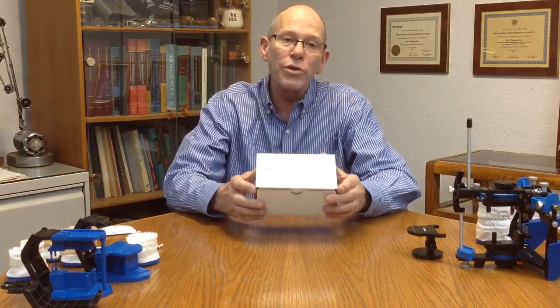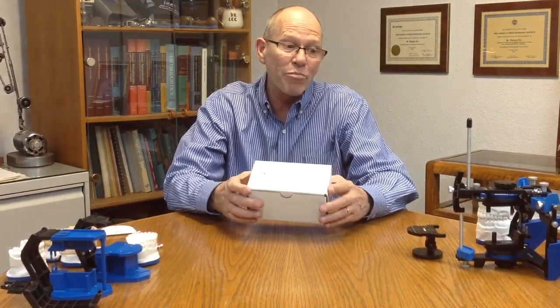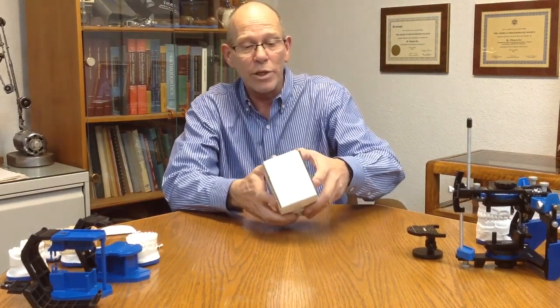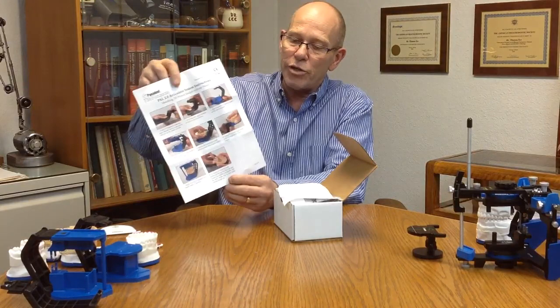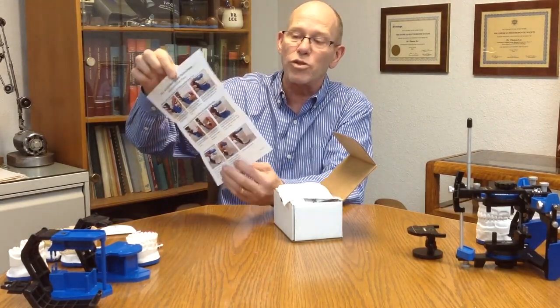The PAL 2.0 is designed more for simple everyday dentistry. It is not necessarily compatible or interchangeable with the full size. It is designed for simple MIP dentistry. So when you get the box, you open it up and there will be an instruction sheet in here. It has the first part on how to use it with 3D printed models, and on the back is how to use it with standard plaster models.